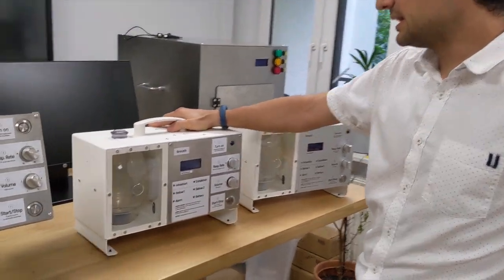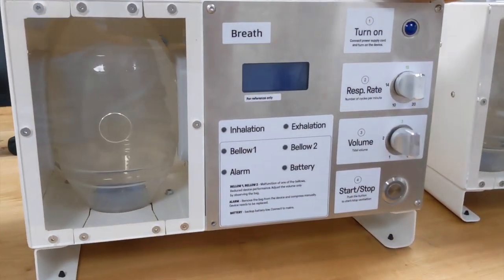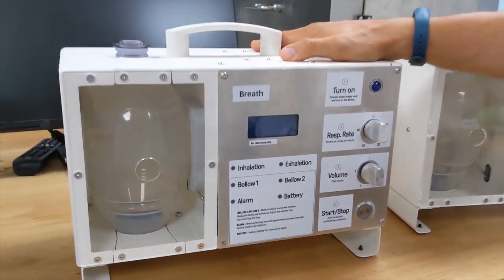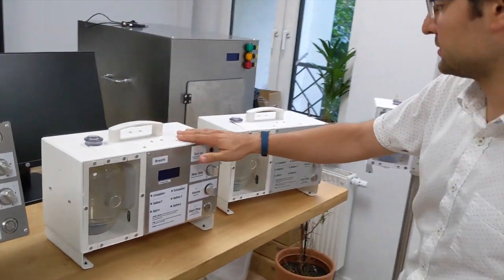Second generation, this is the one that we have done the biggest improvement in the pumping, the pressure, and the right tidal volume and controlling the system.